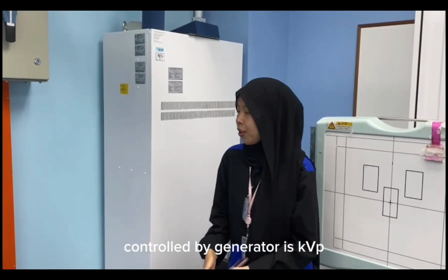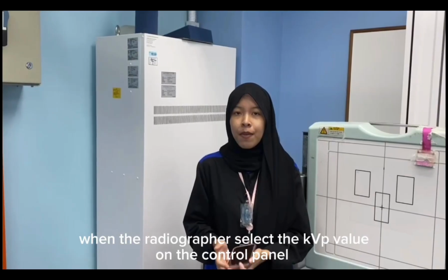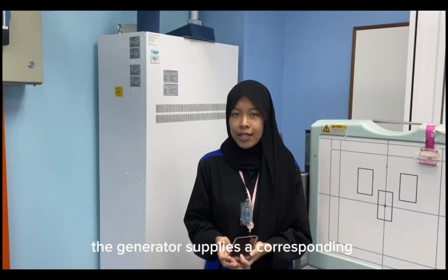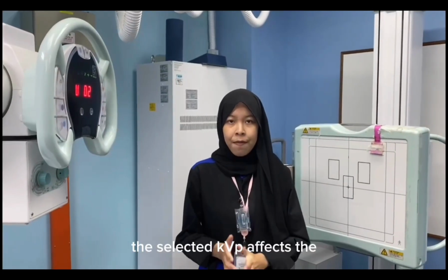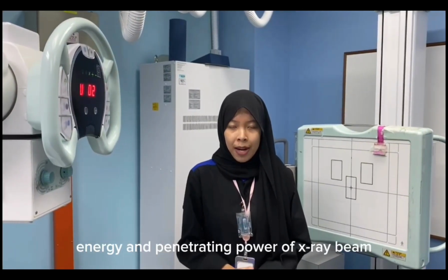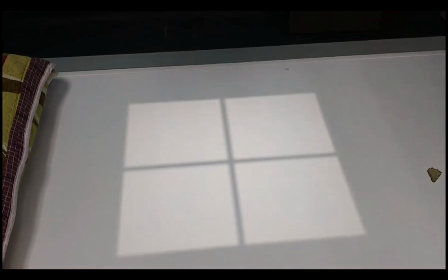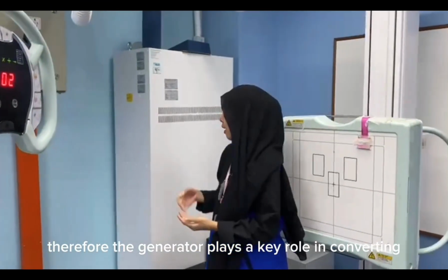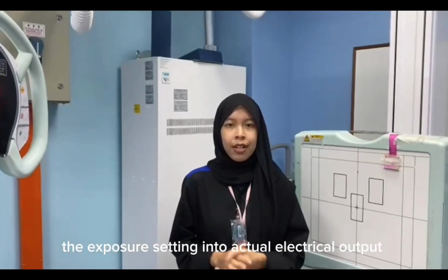exposure factors controlled by the generator is kVp. When the radiographer selects a kVp value on the control panel, the generator supplies a corresponding high voltage to the X-ray tube. The selected kVp affects the energy and penetrating power of the X-ray beam, which will affect image contrast and patient dose. Therefore, the generator plays a key role in converting the exposure setting into actual electrical output.